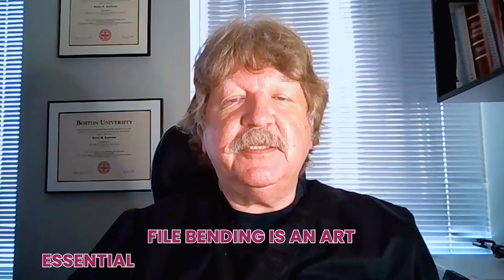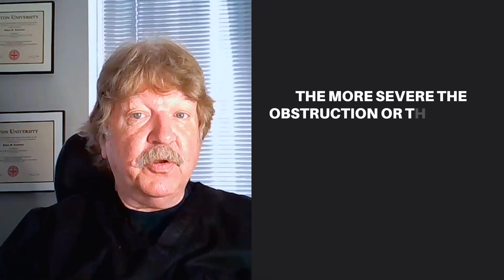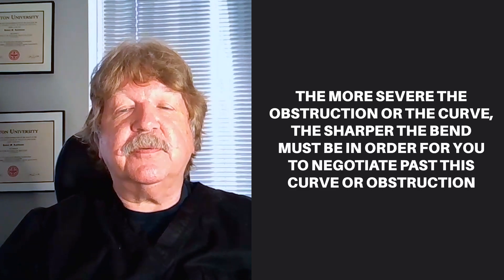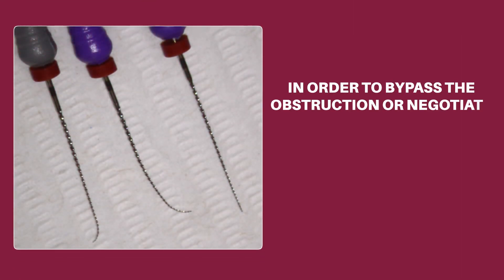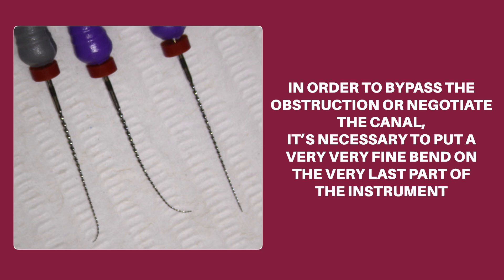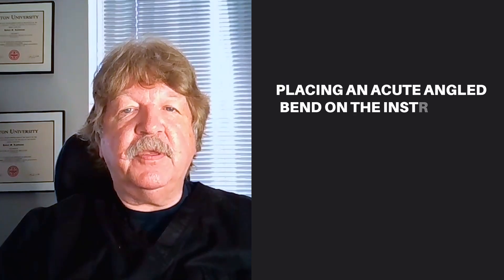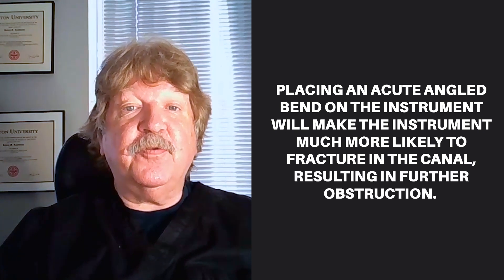File bending is an art essential for good endodontic technique. The general rule is this: the more severe the obstruction or the curve, the sharper the bend must be in order for you to negotiate past this curve or obstruction. The type of bend placed on the instrument is very important. Placing a gradual curve on the file generally leads to creation of a false path or ledge. In order to bypass the obstruction or negotiate the canal, it's necessary to put a very, very fine bend on the very last part of the instrument. The bend must be rounded and not acute. Placing an acute angled bend on the instrument will make the instrument much more likely to fracture in the canal, resulting in further obstruction.